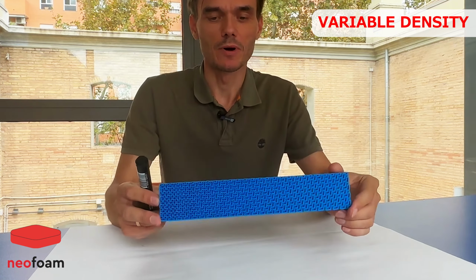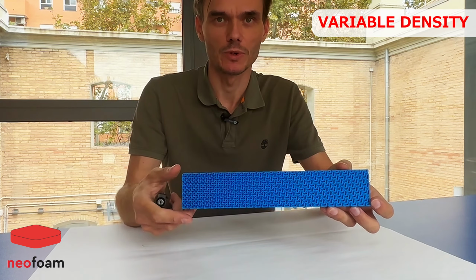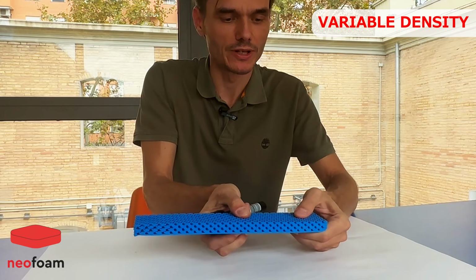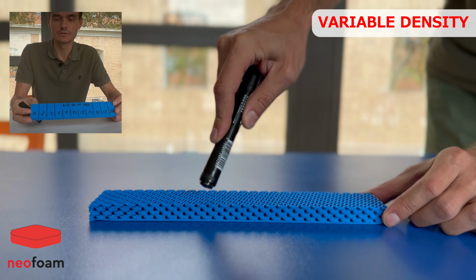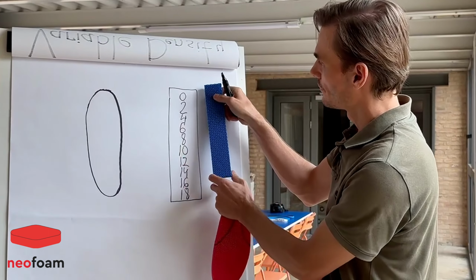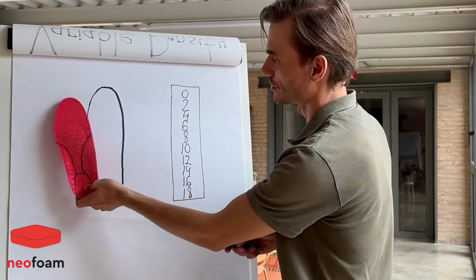So this is a demo bar and you may see that the structure of the part is totally the same everywhere. But it is soft on one side and gradually it becomes more and more dense on another side. And we have 20 different densities here. So here is the representation of this density bar from soft gradually to hard, and this is the insole.